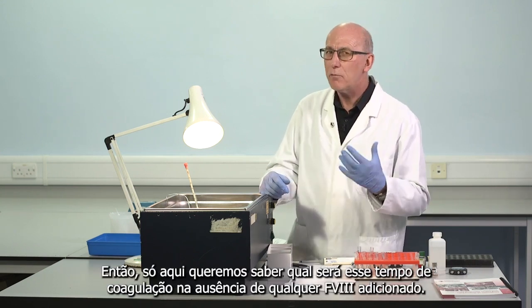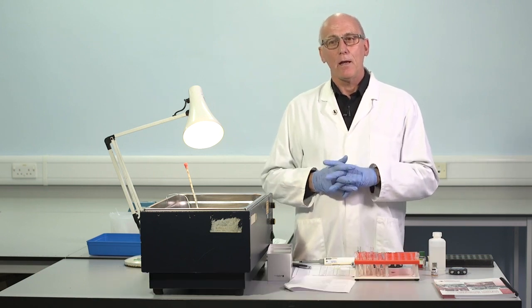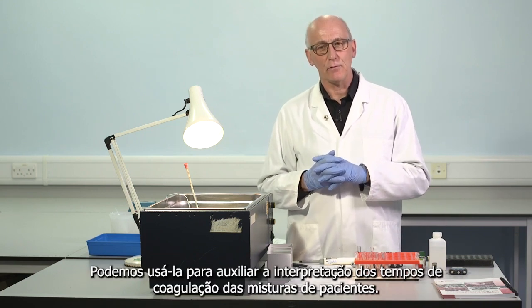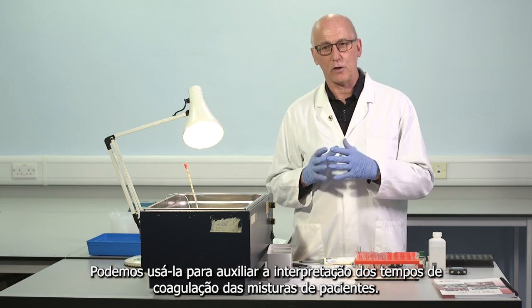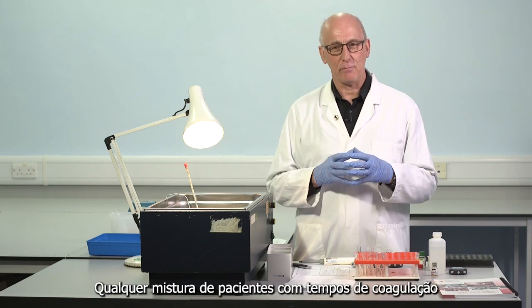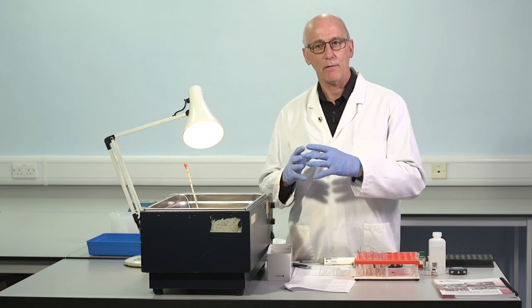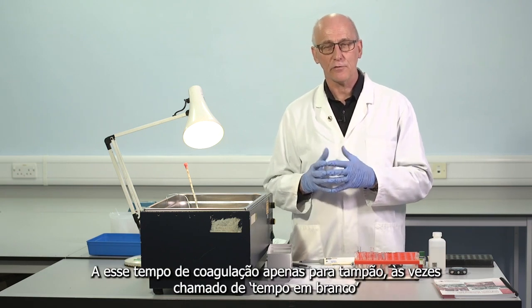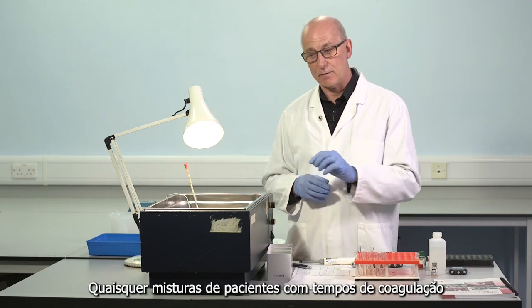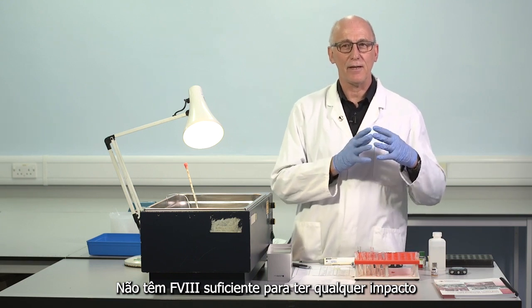So just here we want to know what will be that clotting time in the absence of any added factor VIII. And when we get that piece of information, we can use that to assist interpretation of the clotting times from patient mixtures. Any patient mixtures with clotting times very similar to this clotting time for buffer alone, sometimes called blank time, sometimes called buffer time.